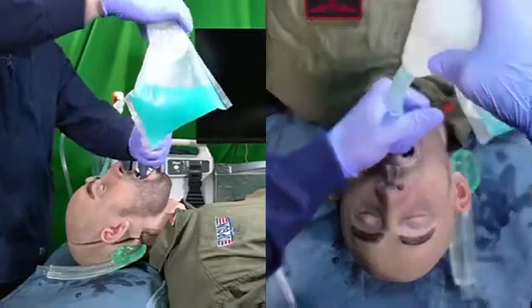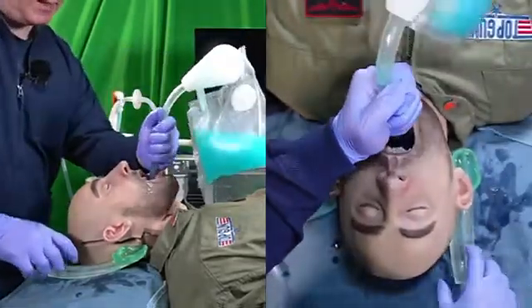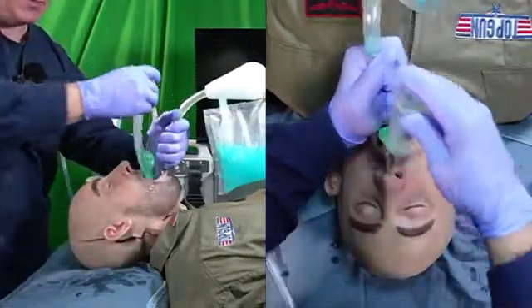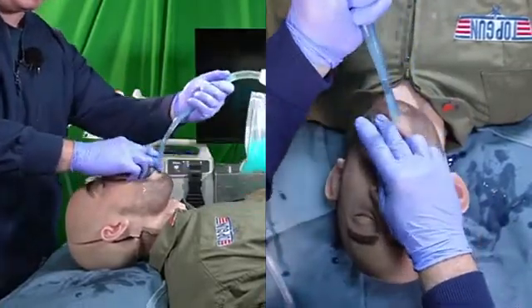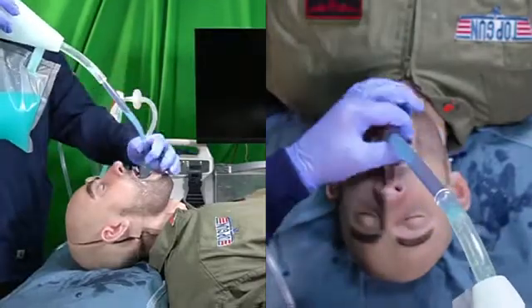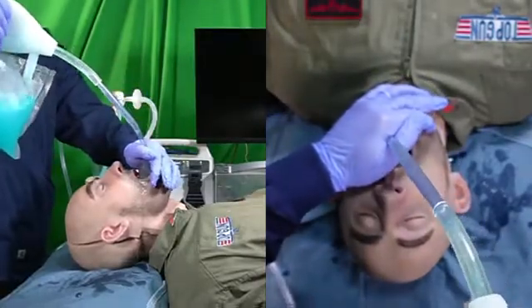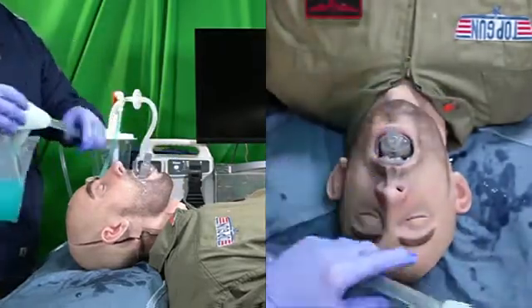What I'm going to do now is push the tongue into the floor of the mouth, distract that base of tongue off the posterior pharyngeal wall, and place the supraglottic airway all the way into the mannequin. Now I'm going to perform a rapid airway decontamination maneuver using the device to decontaminate the ventilation channel.